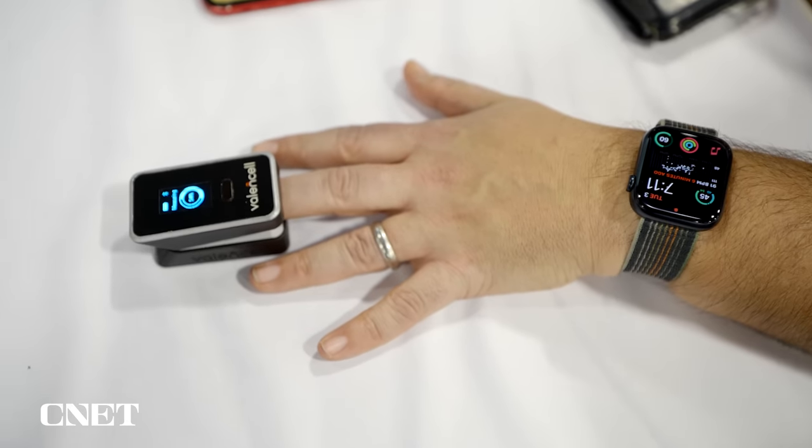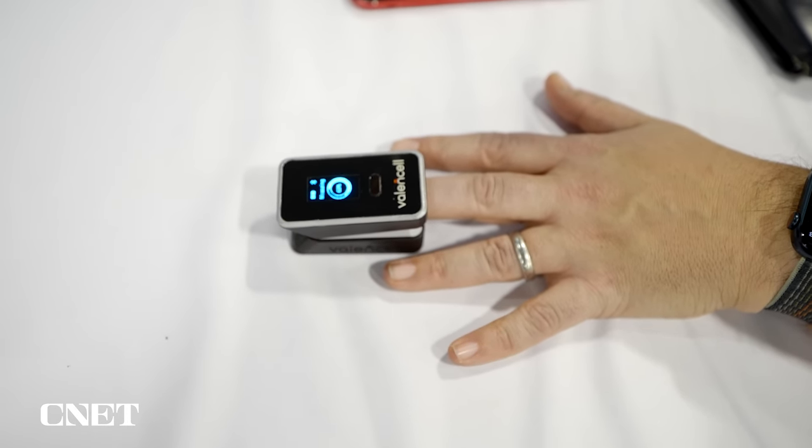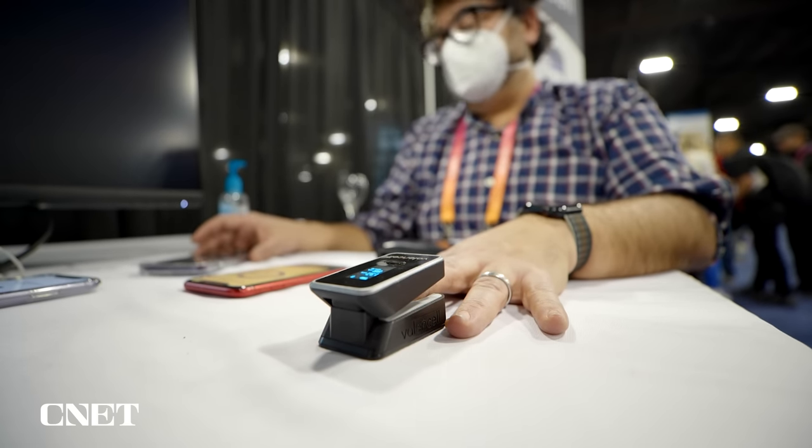What's the difference? It's a lot smaller. This thing is so small that you could just tuck it in your pocket, put it in your bag. The technology is similar to a pulse oximeter in that it uses light that bounces off of your finger to measure for blood flow using a technology called PPG, that gets interpreted with different algorithms to find out your blood pressure.